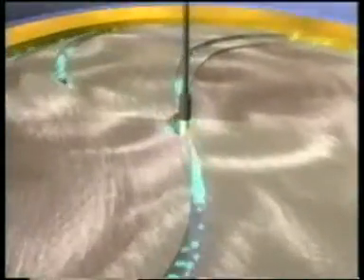The proton begins its incredible journey at the ion source. Within fractions of a second, hydrogen atoms are separated into negatively charged electrons and positively charged protons.